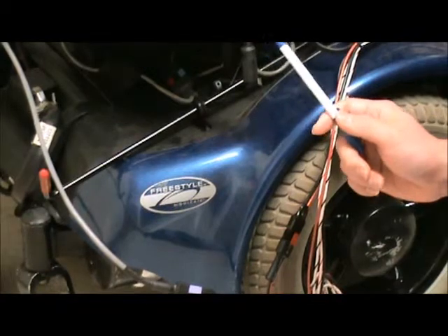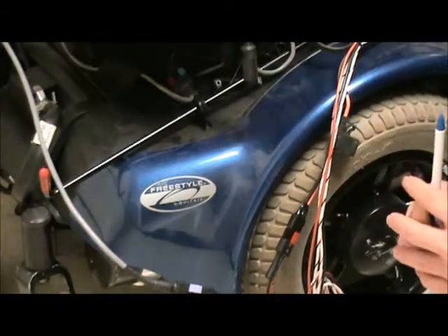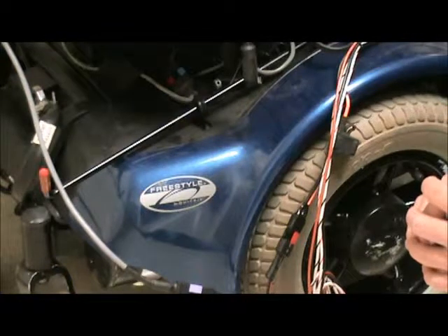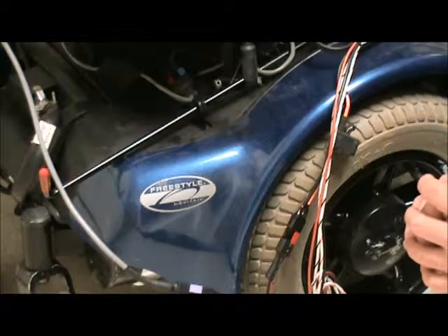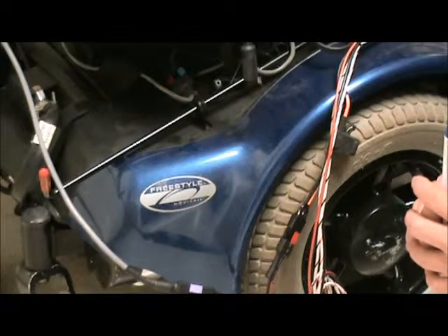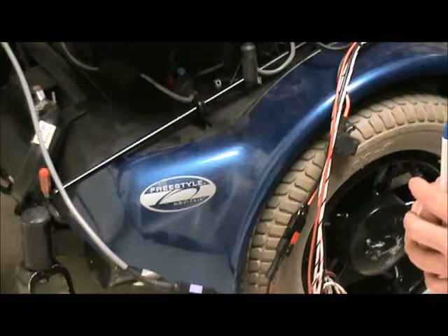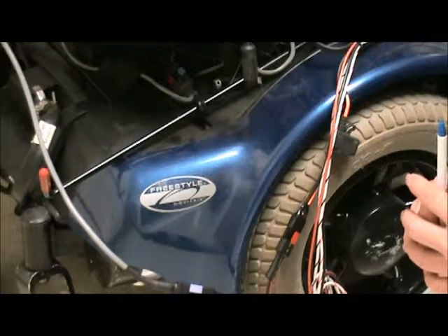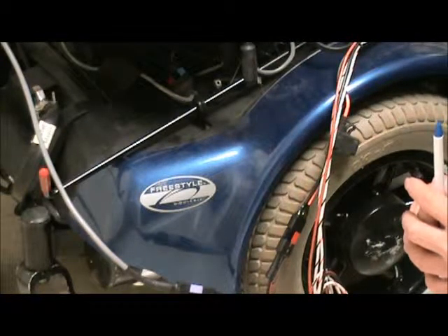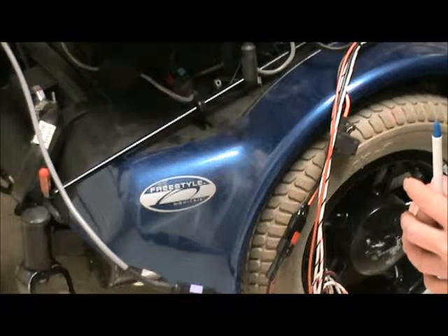When the ventilator is not running from the wheelchair battery, first you need to check the light indicator on the ventilator. If the DC light is not lit up, we need to do troubleshooting. First of all, check the on/off switch at the back of the ventilator and make sure it's not accidentally turned off.